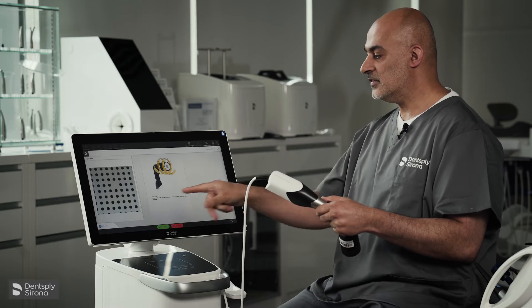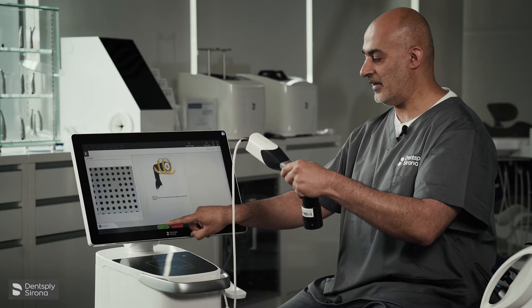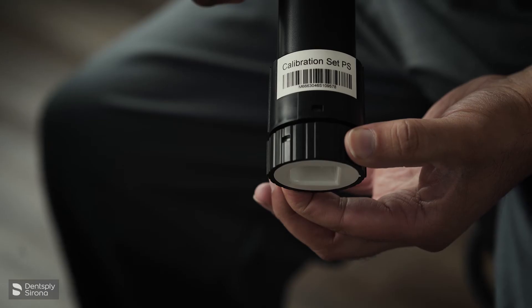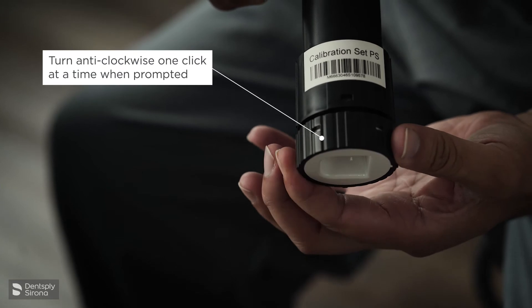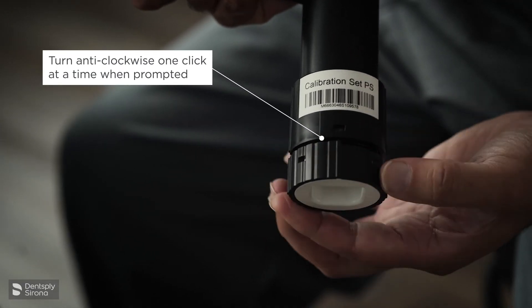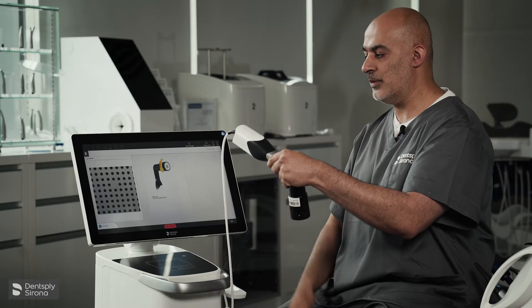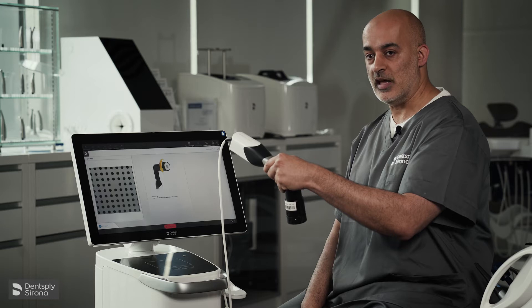Looking at the settings, step one: you're going to start screwing both parts. Select OK and turn — it can only turn anti-clockwise. It tells you to move with each turn. So at step three, you keep unscrewing until it captures the image.